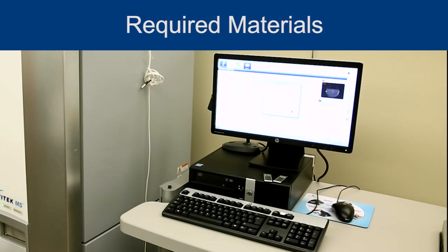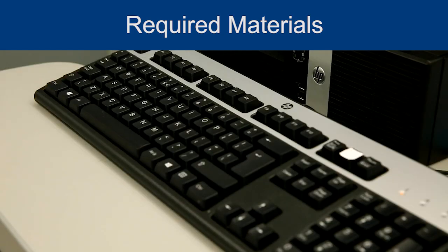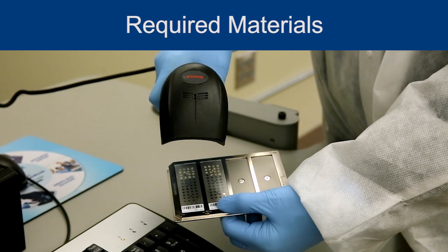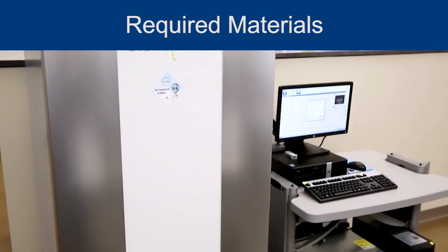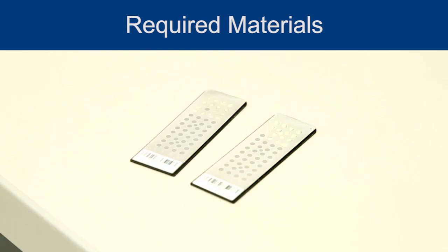Required materials: a VITEK MS Acquisition Station computer and software, a monitor, a keyboard and mouse, a barcode scanner, VITEK MS instrument, and a prepared VITEK MSDS target slide. Note: slides should be tested within 48 hours of sample preparation.